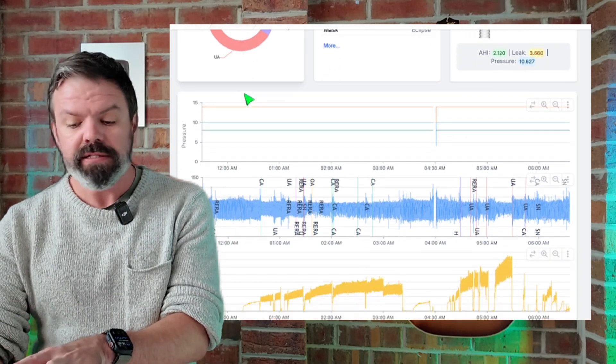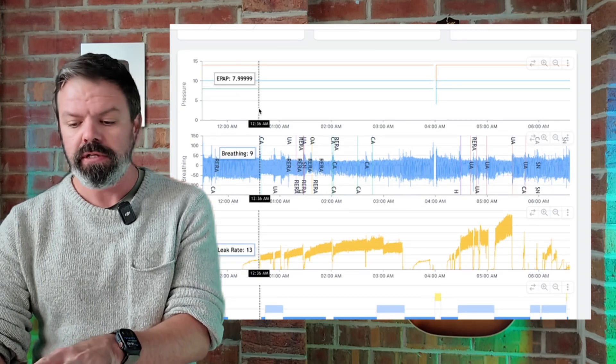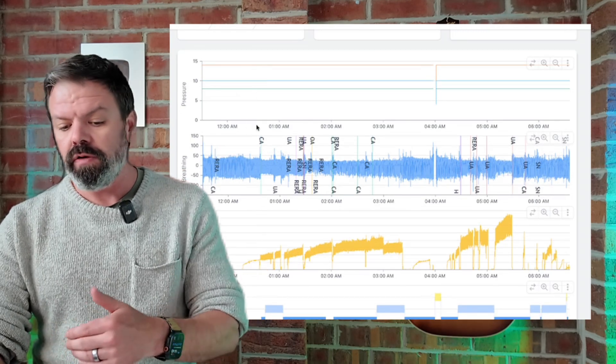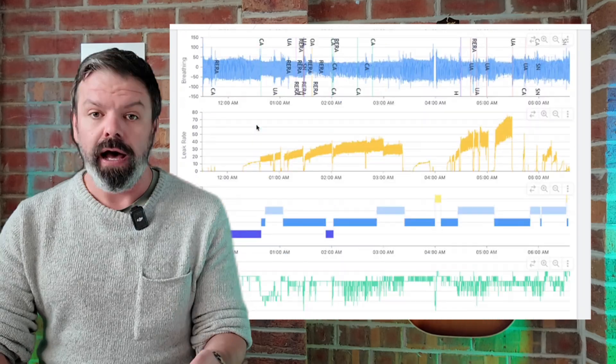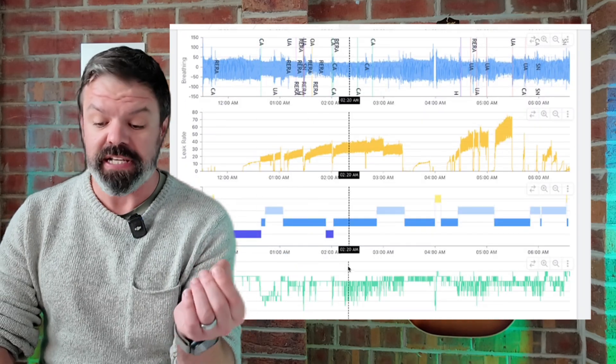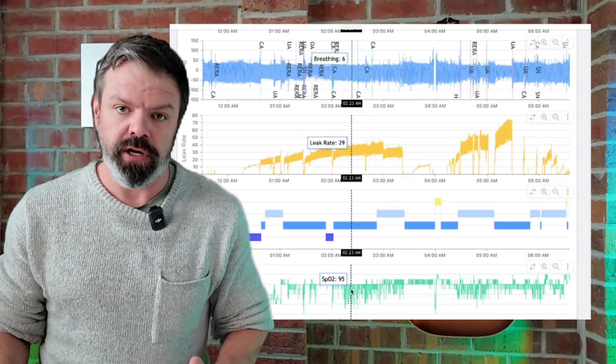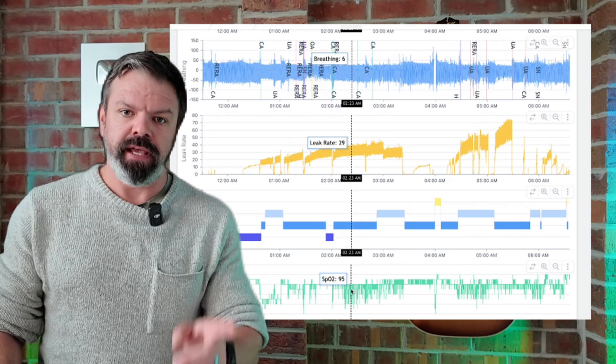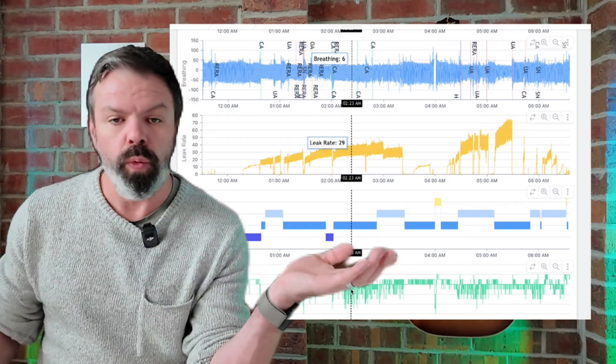This isn't good quality sleep here. There's a lot of disturbance, a lot of arousals, a lot of oxygen desaturations. So don't just go on the AHI. Now the next question: what can you do about it? Well, what's mouth leak kryptonite? The pressure. The higher your pressure levels, the more likely air is going to shoot out through your mouth, especially once again during REM. That's when we get those pressure spikes. We get this fast increase in pressure - whoop, up she goes - forces air out through your mouth.